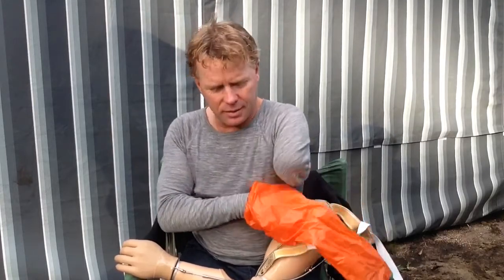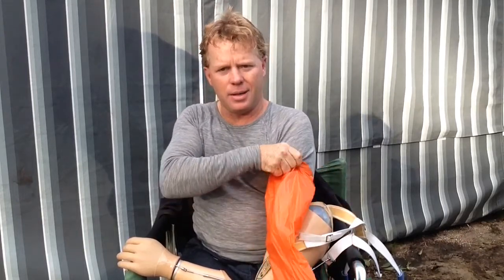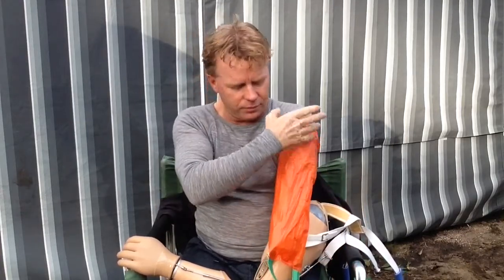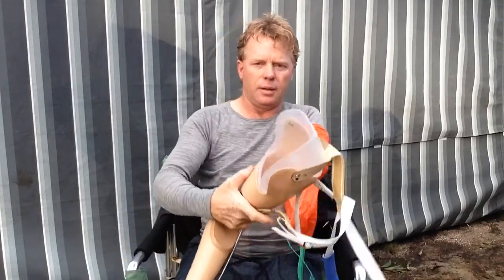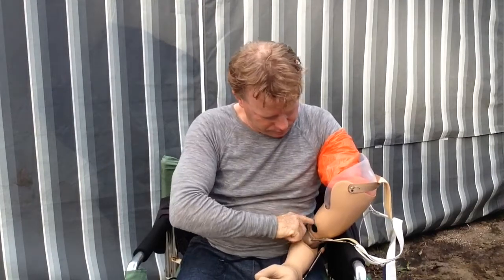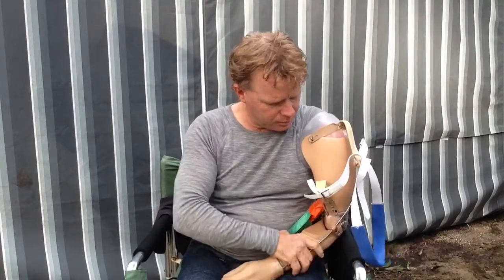I just want to show you what it takes just to get into an arm. This thing here is what they call my parachute. This helps me get my arm into the actual socket. So what I've got to do is fiddle around with this crunchy bag — it's challenging all of its own. Air out of the bag, I've got to climb into that. I guess this will get easier with time but it hasn't been very easy so far. There's a little hole here that I use to pull things through, so the positioning is good.